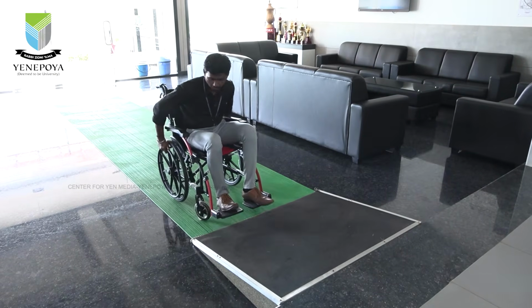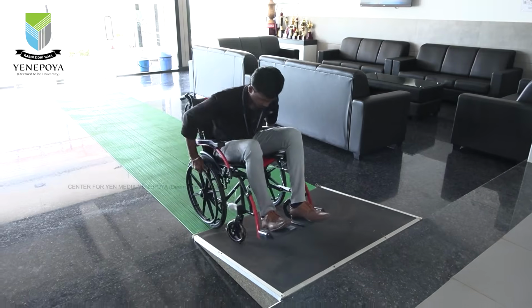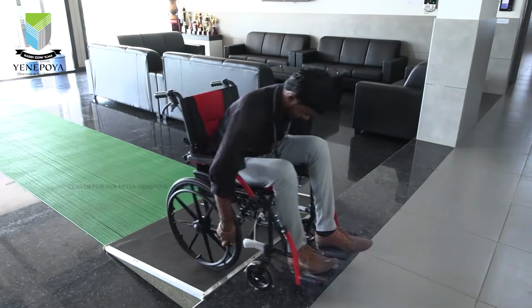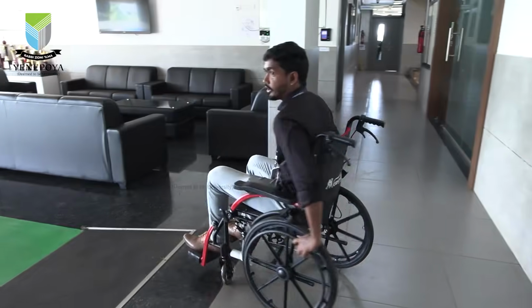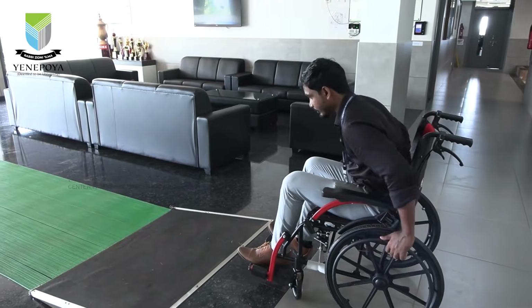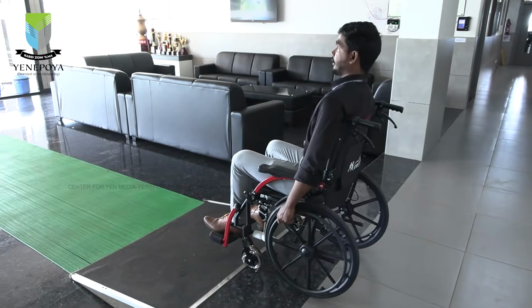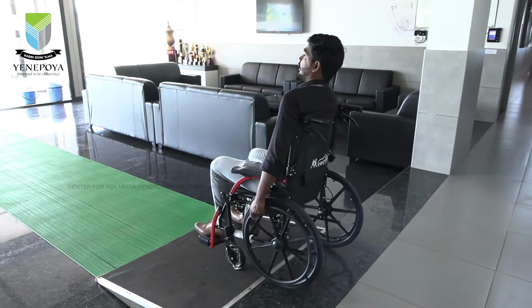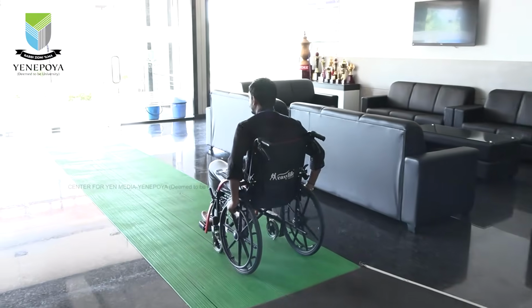Okay, so here there is more of an upward slope, so I will lift, then push down. This is how we do the incline. While going down, we should not use more force. Just try to hold it down and rest your back well against the backrest. Slowly you leave it, so that you control it and you can go down.